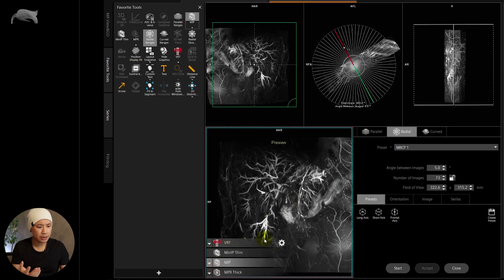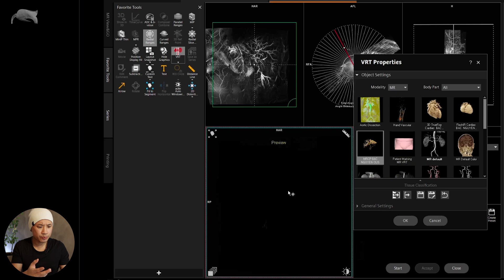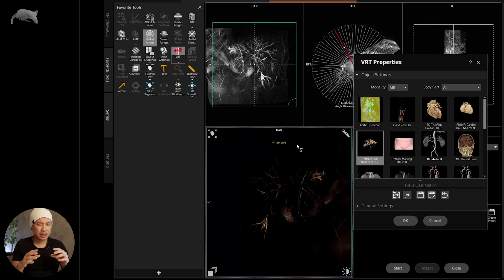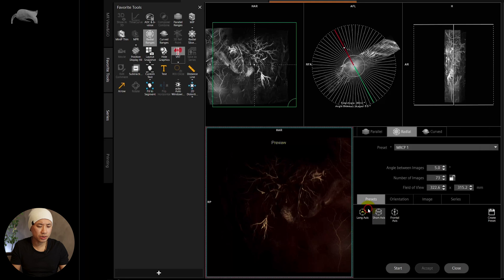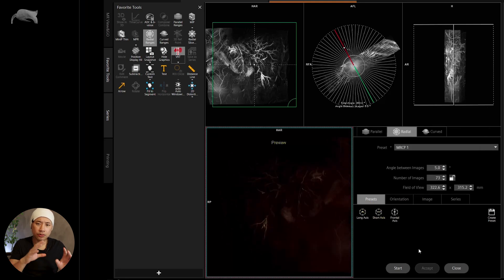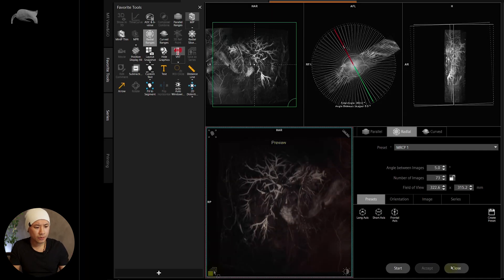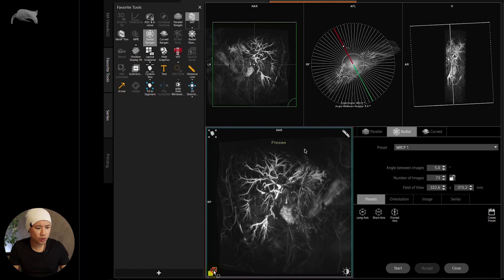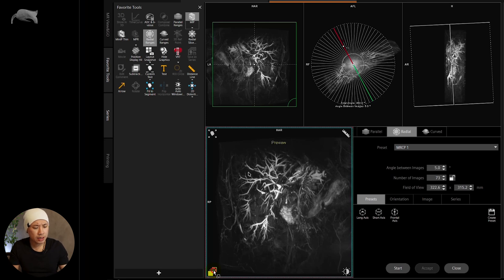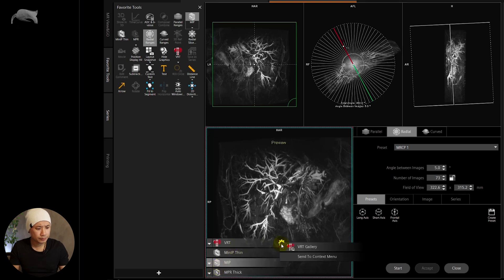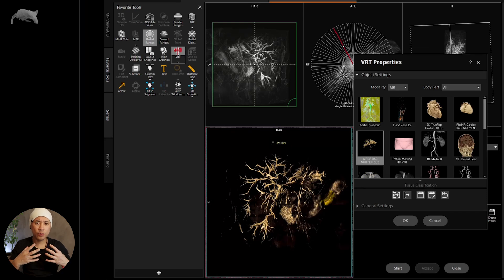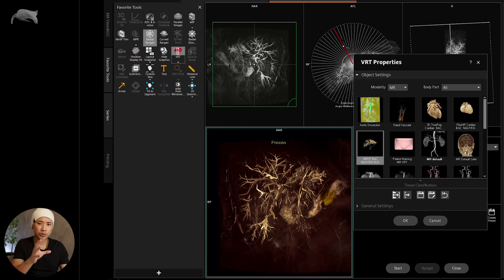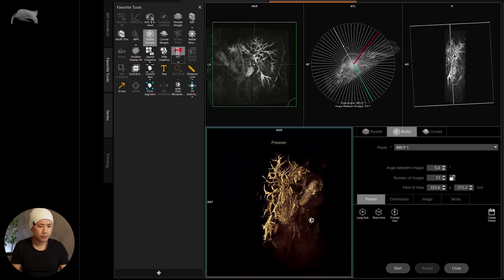The next thing I noticed was when doing VRT or cinematic rendering — I went in, chose the MRCP preset, and whatever you do with the window leveling it just doesn't work. It really gets dark and you don't get that full brightness you want — it's very difficult, almost impossible. Now let me show you the pre-scan ON version. First, you can see it's more homogeneous. The brightness is more homogeneous and you get that punch in the periphery as well. In the VRT you can see right away it's much easier to do the window leveling and push the boundaries — it's totally different.